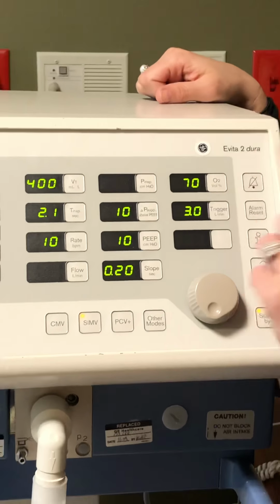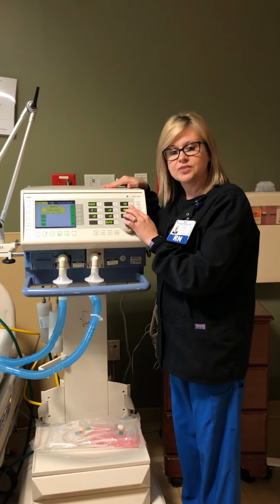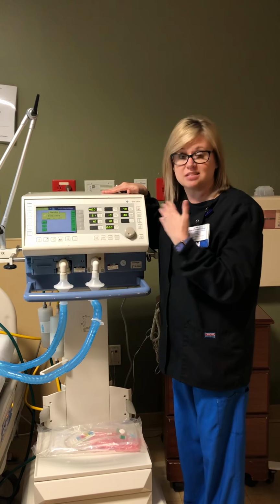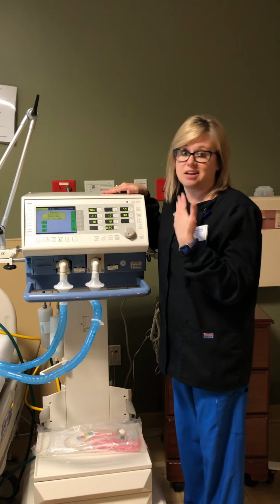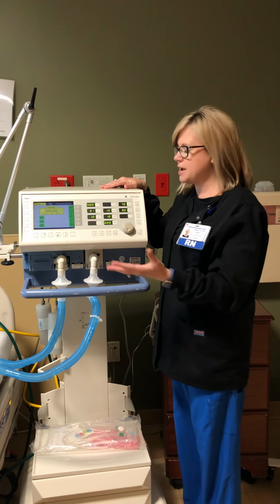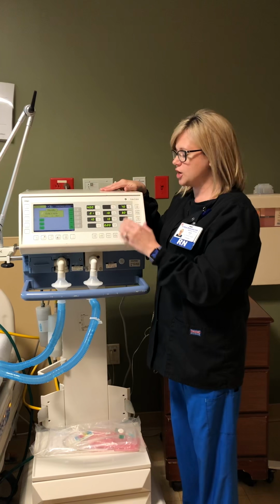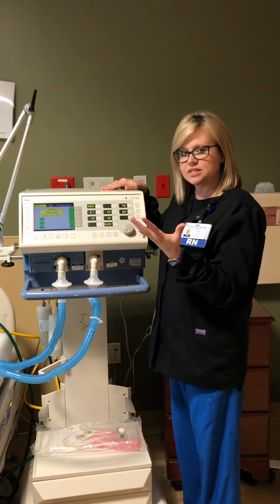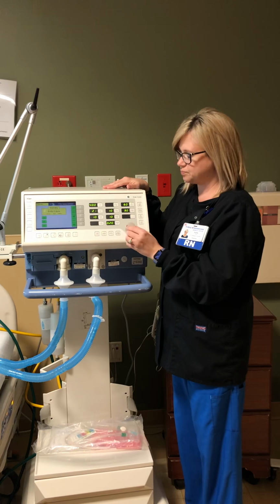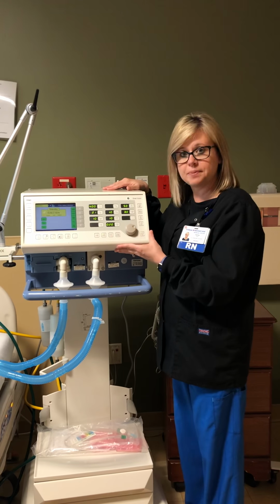So say you suction the patient, they drop their oxygen sats and respiratory therapy recommended going up on their FiO2. Now it's been an hour and their oxygen level has finally evened back out or went back to its baseline, 88, 89, 90. You may need to go back in there the next time you're doing a task, giving medications, assessing the patient, and tell the respiratory therapist, hey, I'm going back in there. Would you like me to go down on the FiO2? If they say yes, same thing. You're going to select it and then go back to what it was originally set at, 50%. And then select. Same thing for your PEEP.